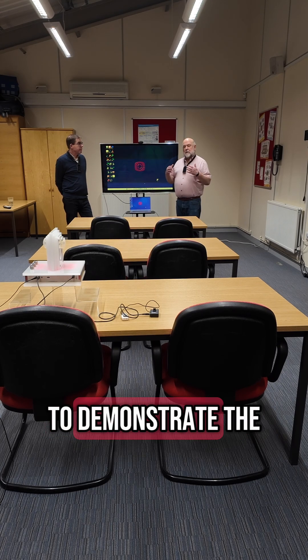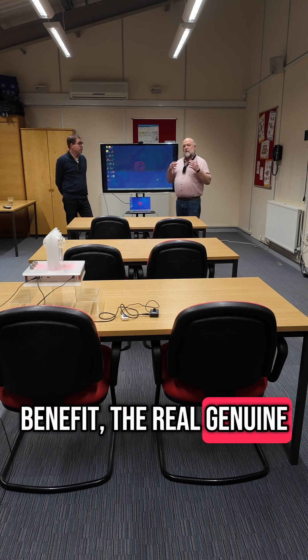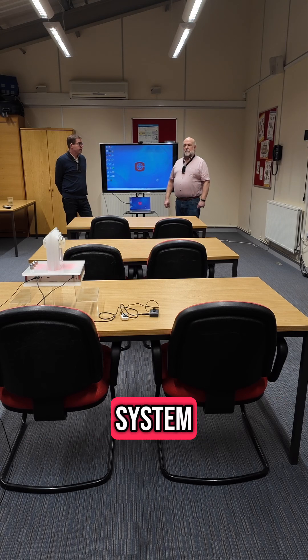To demonstrate the real, genuine, very simplistic benefit of having a Roger radio microphone system.